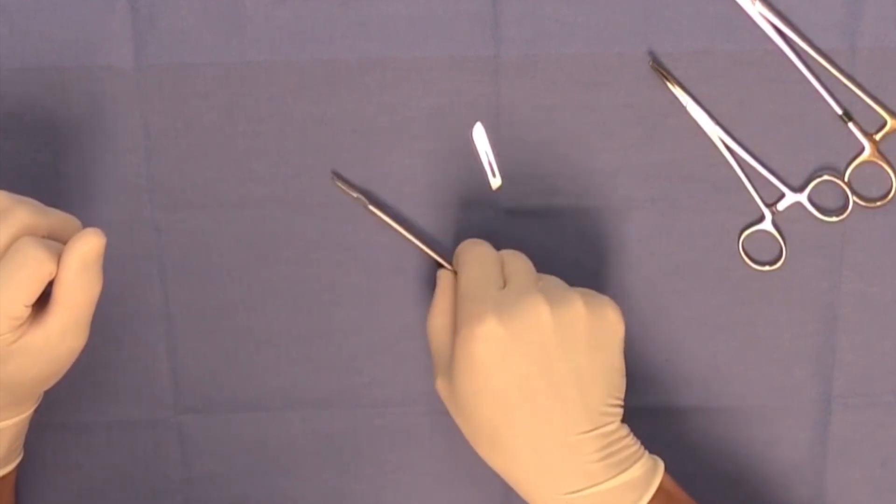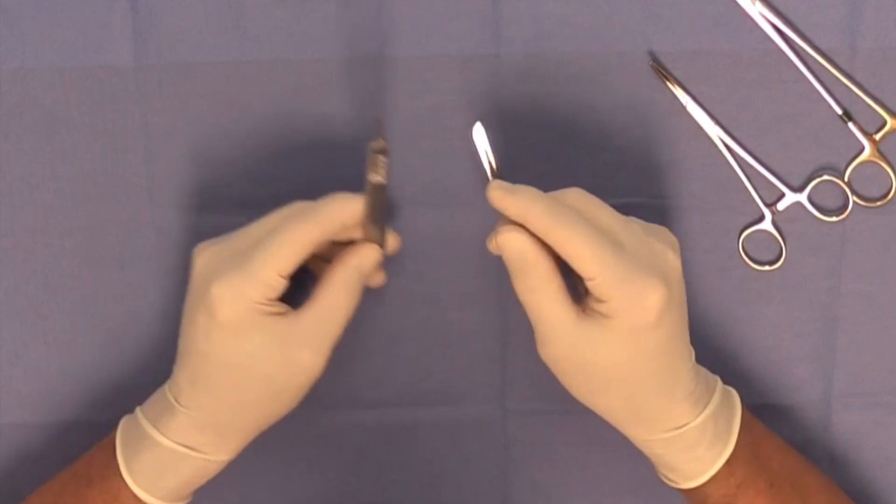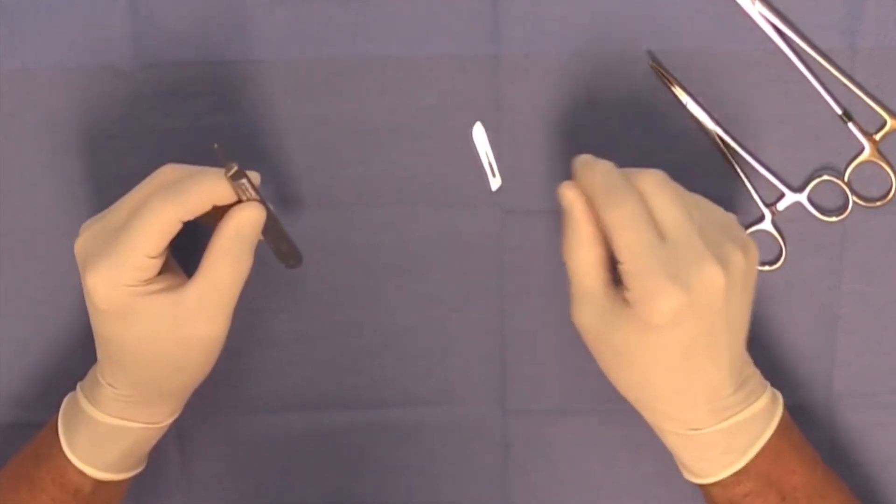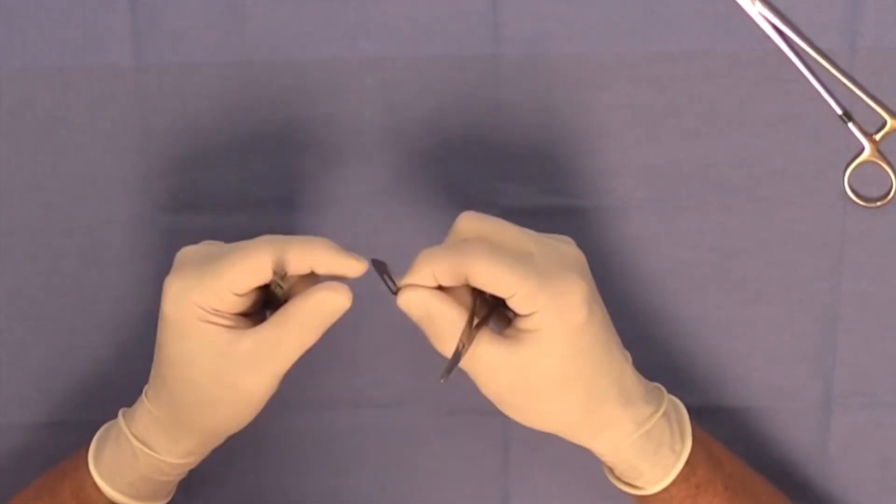Now, there are various sizes of scalpel blades and scalpel handles. I happen to have a number three Bard Parker scalpel handle here and a number 10 Bard Parker scalpel blade.